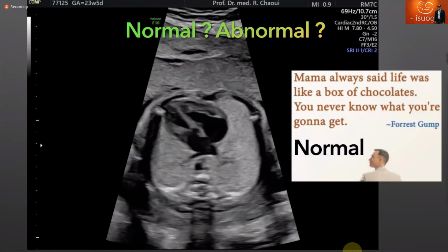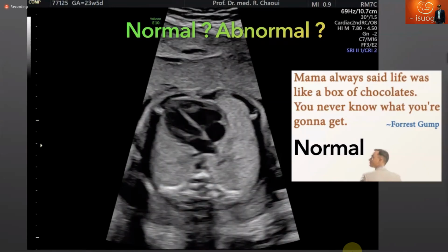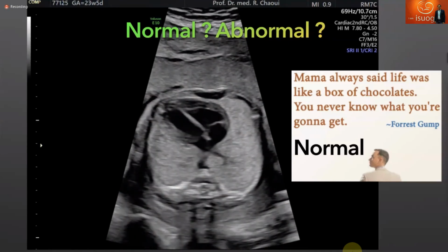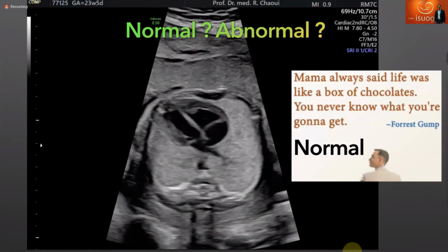Remember, Forrest Gump, this is a normal heart. Why am I showing you this? Because when you are scanning, you think all the time, is it normal or abnormal? This is why you should go through your checklist. And I'm happy now that you went through your checklist and you wanted to find something, because you are expecting to find something. I will put another case.